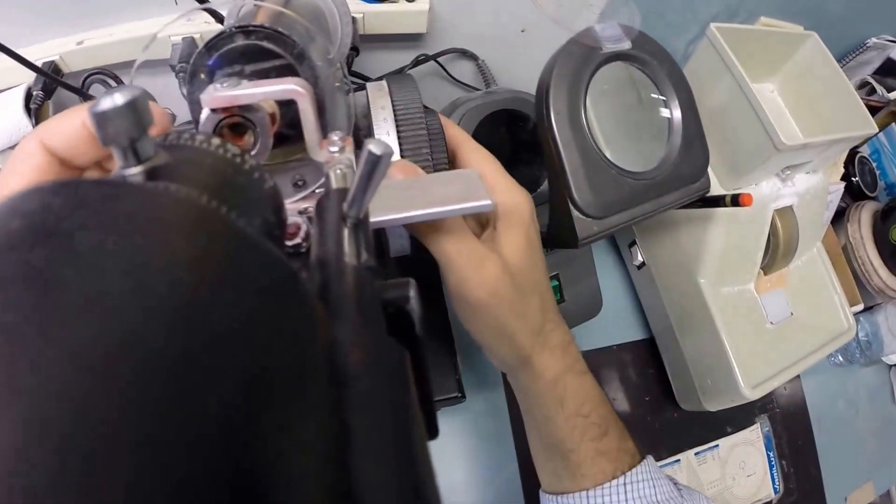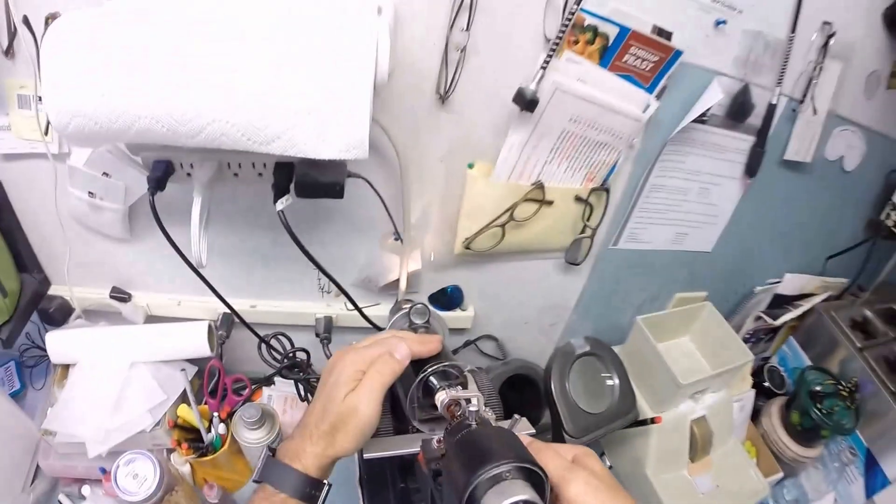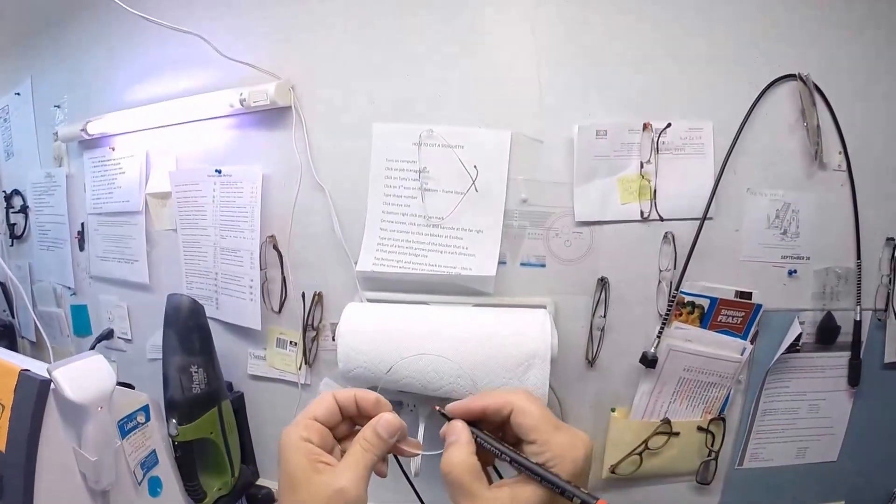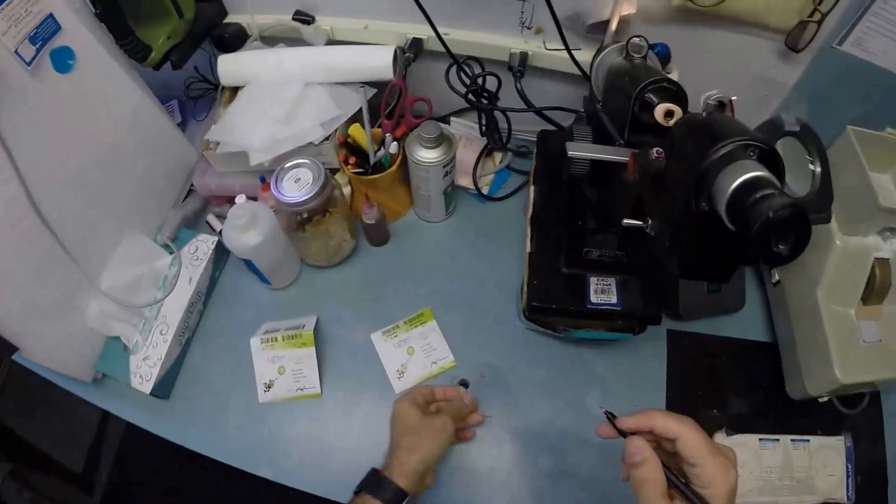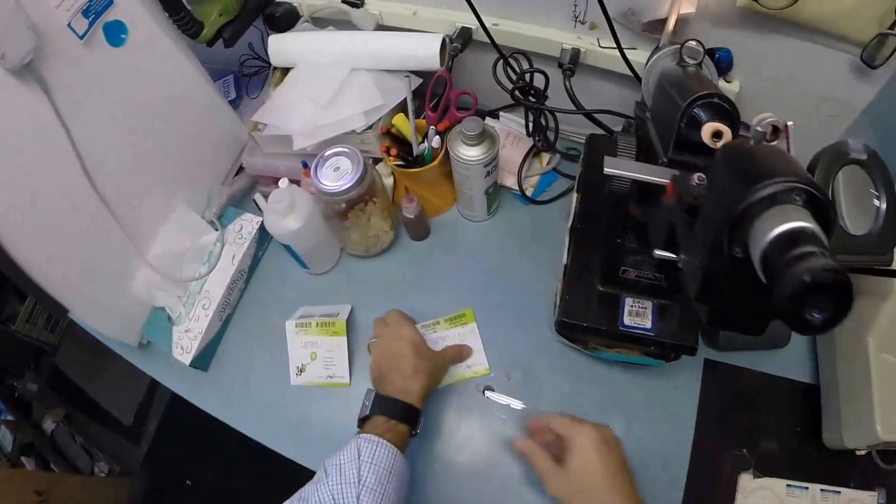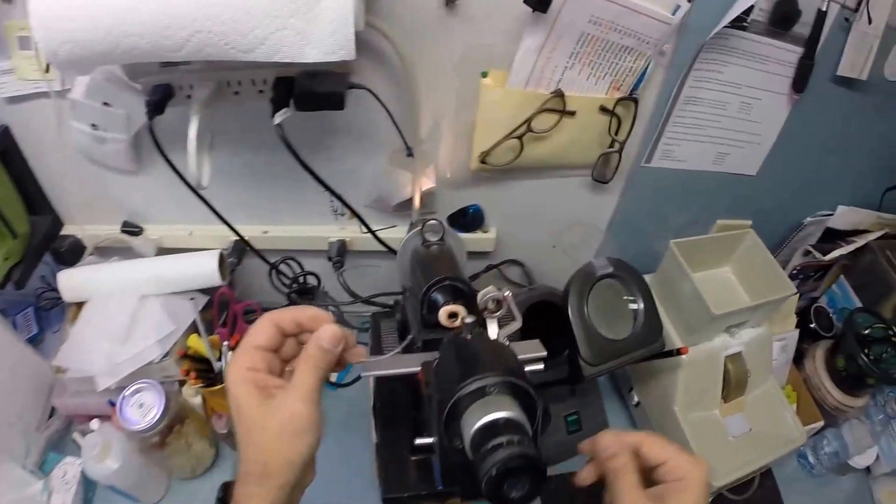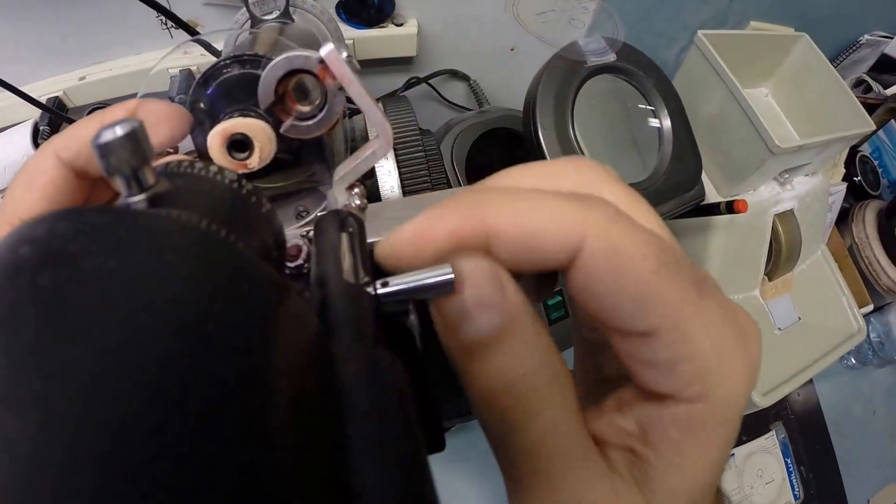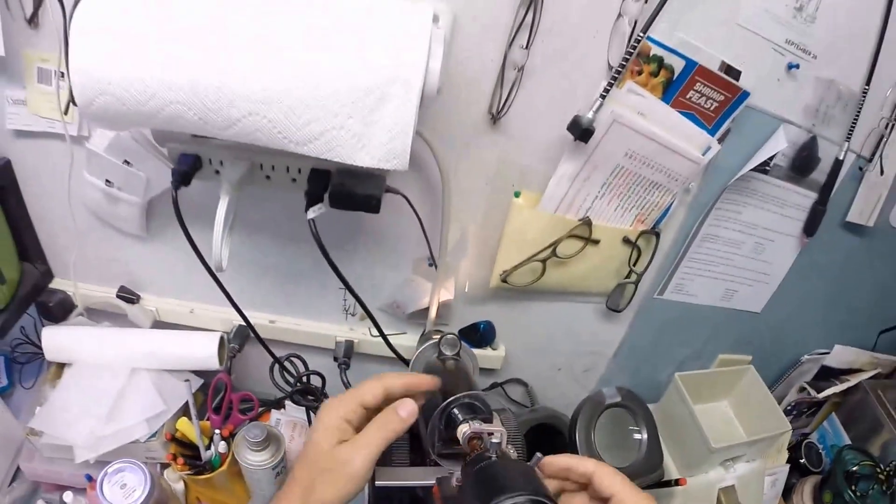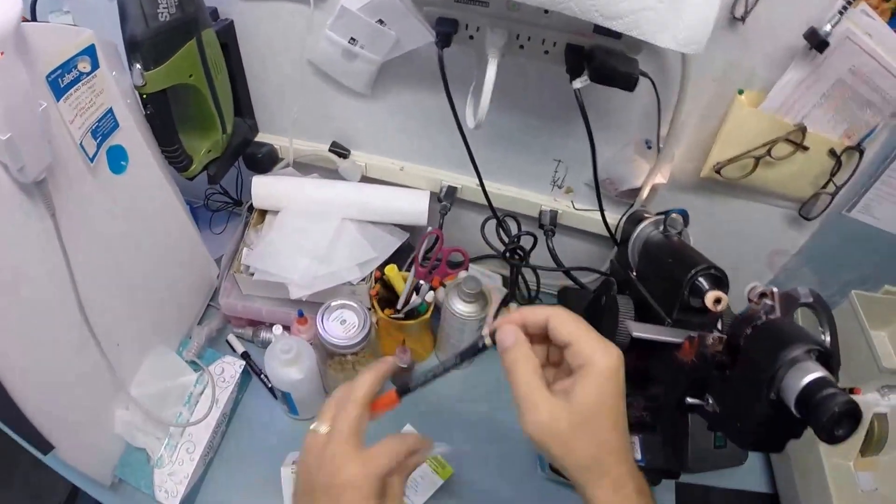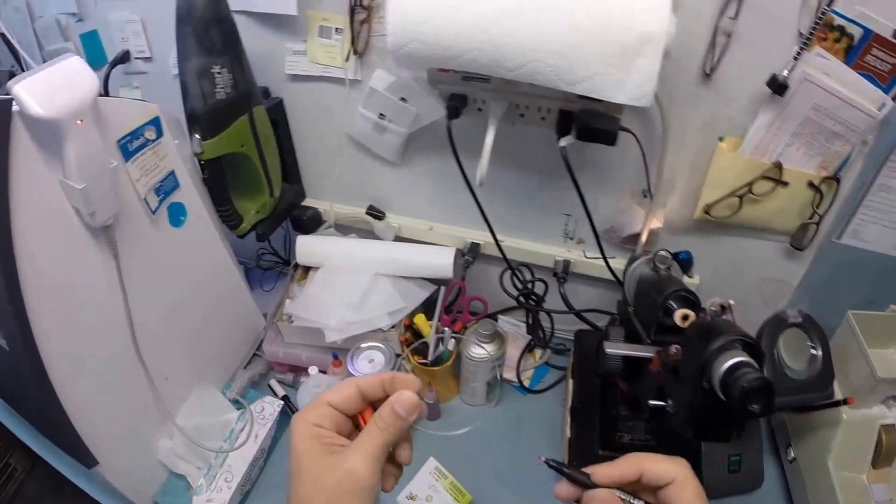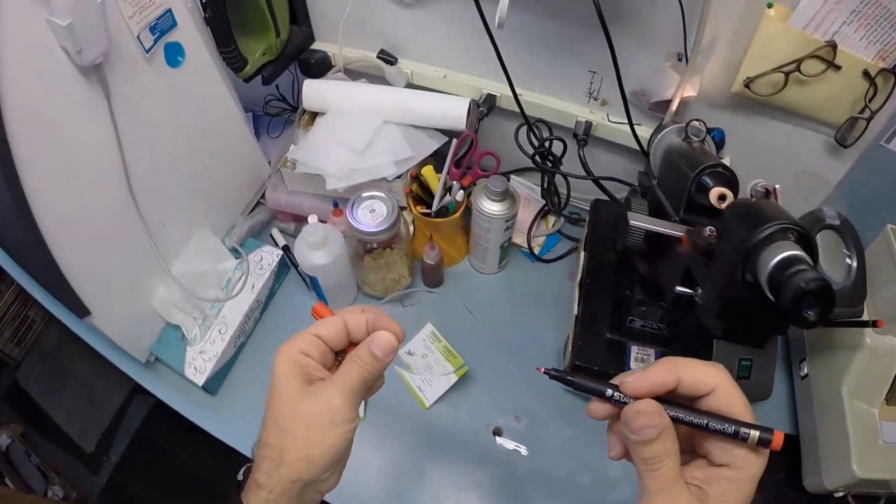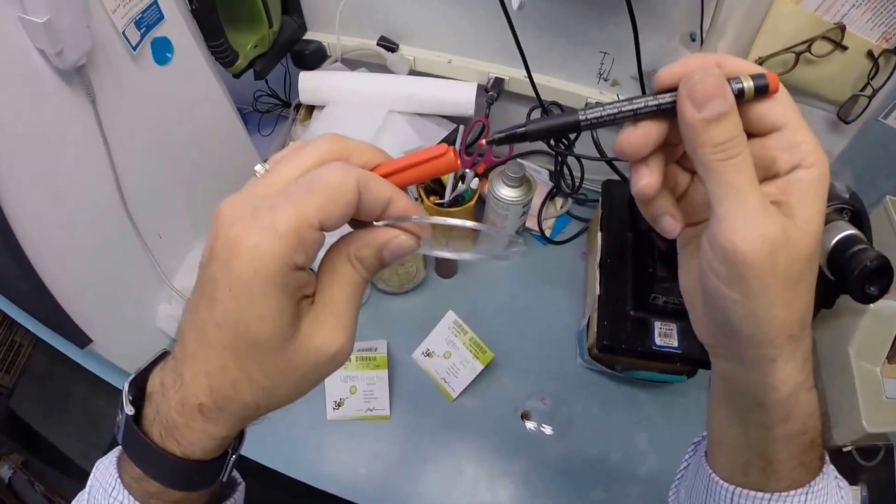I do not have to rotate it because you have no astigmatism correction. I'm going to put a dot on the center of each lens, which is too light to see, so I'll darken that and put an R for right. Let's do the same for the other lens. We'll put an L on this lens, which stands for not right, just like me. If you missed any of that, let me recap. I know it's bad, but you'll be telling that joke tomorrow.